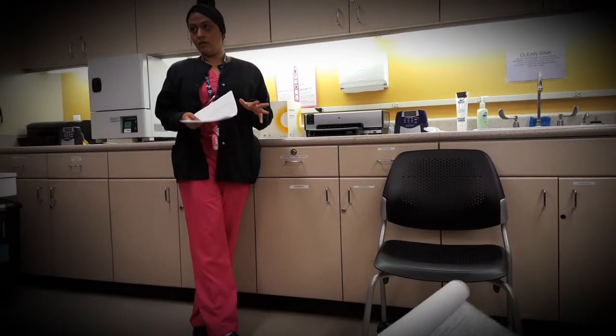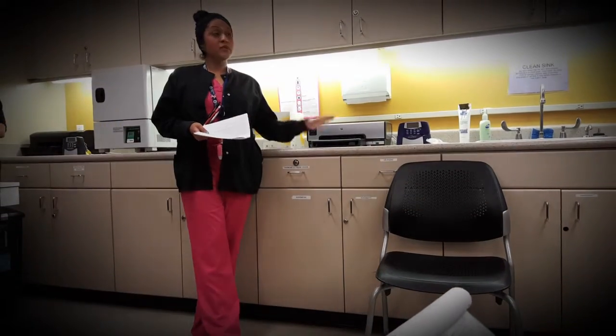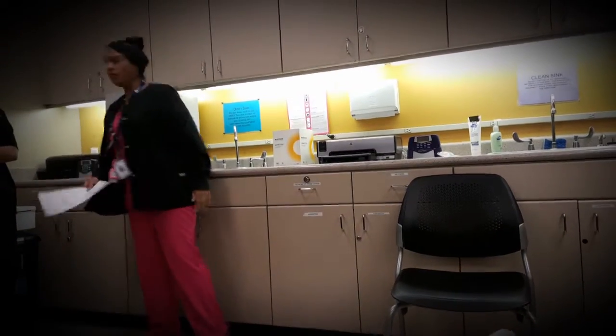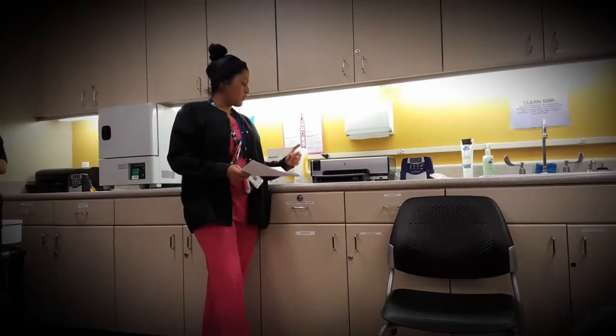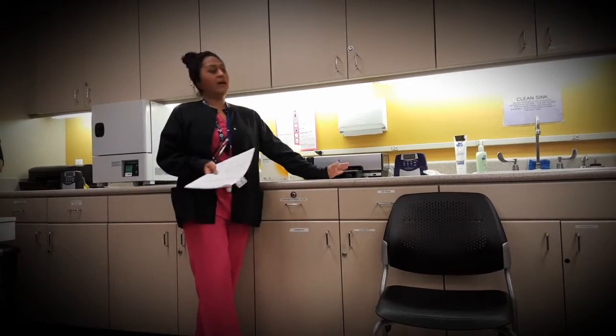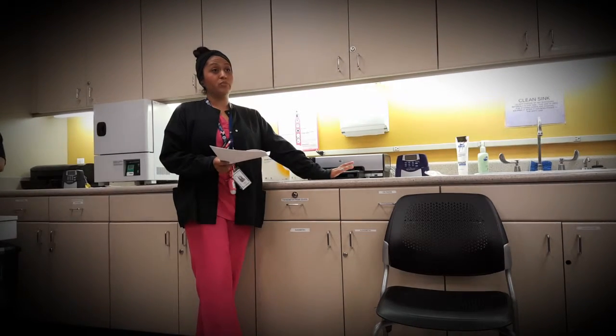This test is a little different. It's called a PFT, otherwise known as a pulmonary function test. It tests lung capacity — how much air you can take in and how much air you can forcibly exhale. It's really easy to do. We have two machines here. These are manual PFTs, though some are fancy and attached to a computer.